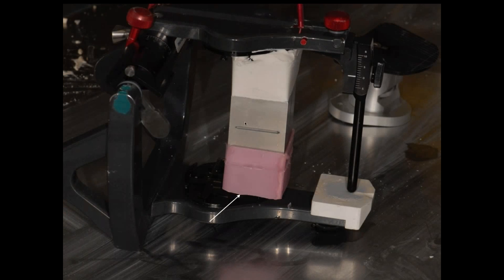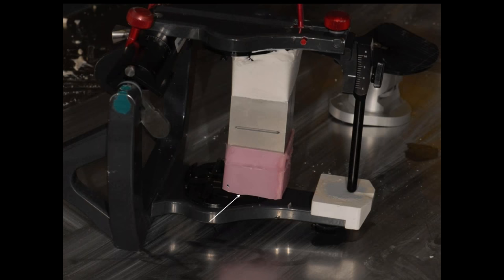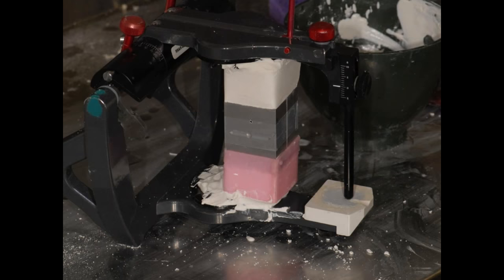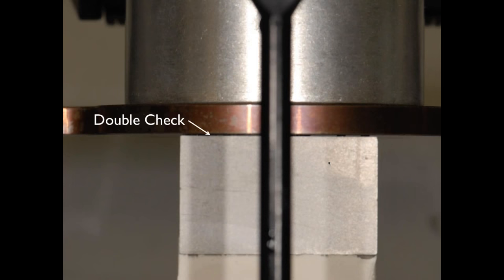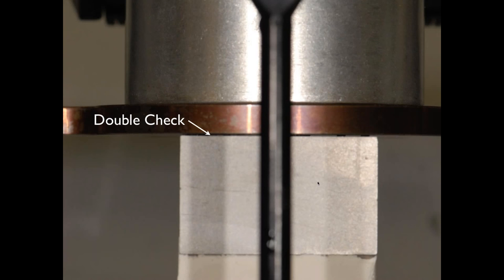Then it's carefully positioned — there's a notch for the left-to-right centerline and a horizontal line — and we finish our mounting with a small amount of stone to minimize dimensional change. After setting for 24 hours, clean it really good, then mate the other calibration object to it and mount the lower. These are magnetic — they will stick together. Once mounted, they also serve as a check for articulation accuracy as split casts: put them on any articulator in your lab, and if there's not a perfect seal, you've got a problem with that articulator.